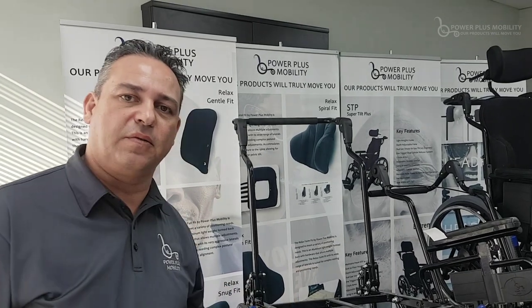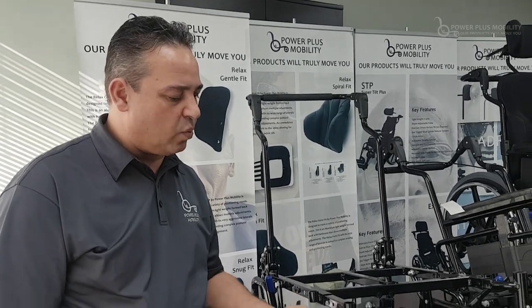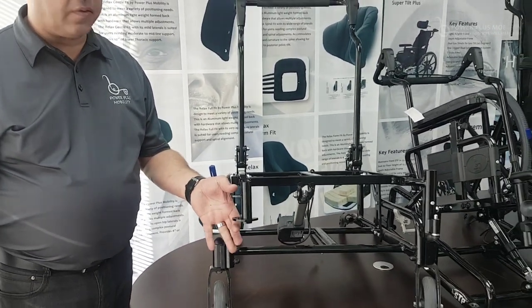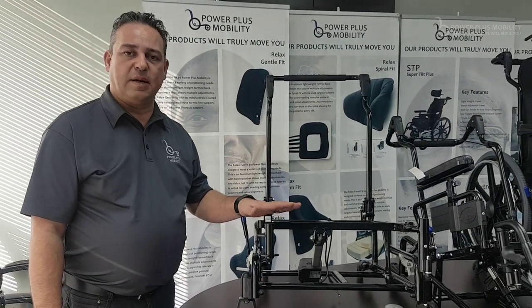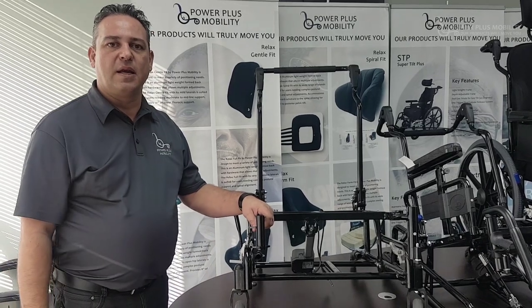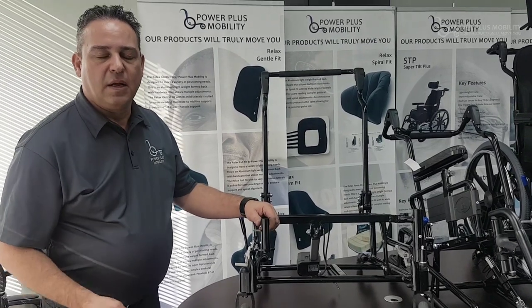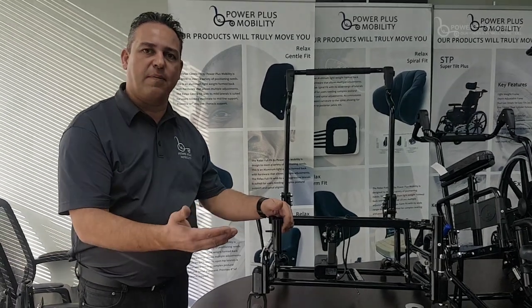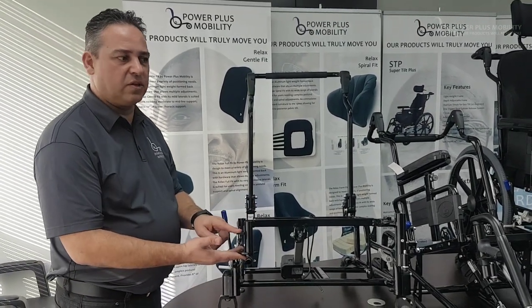A pin and saddle will have two different widths. The first width, which is a standard size, is called a Hemi — that's one inch between this gap here, as opposed to two inches. Having a difference in this gap allows for a stronger front rigging. In a bariatric application — somebody who's more than 250 pounds — we put a spaced-out pin and saddle on it, which allows for the ultimate strength of the front rigging so they don't snap and break it. People often open doorways or move obstacles with their front rigging, and this is the first thing to snap on a chair. So pin and saddle is definitely the strongest.